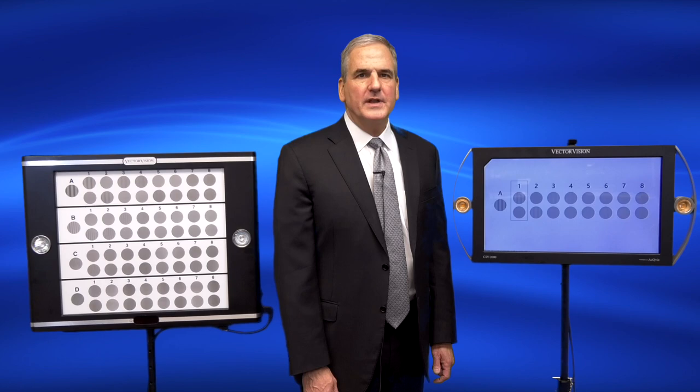Good day, my name is Dr. David Evans and I'm the founder of VectorVision. I'm here today with our CSV 2000 product and our CSV 1000 product to talk about contrast sensitivity testing.